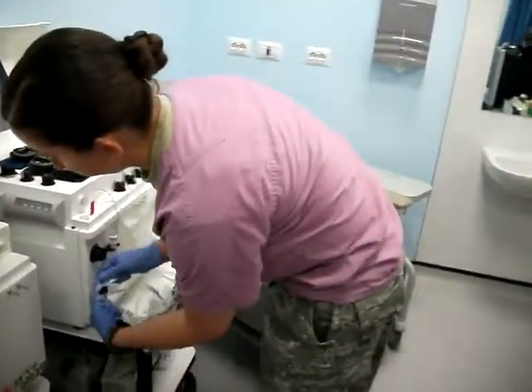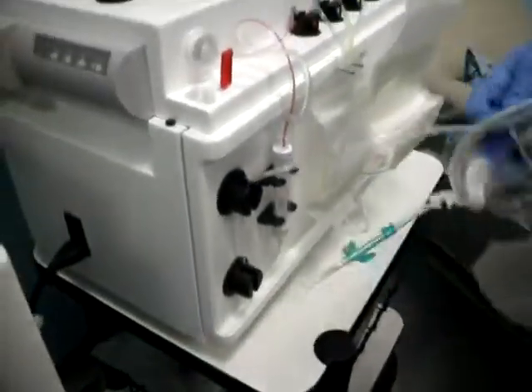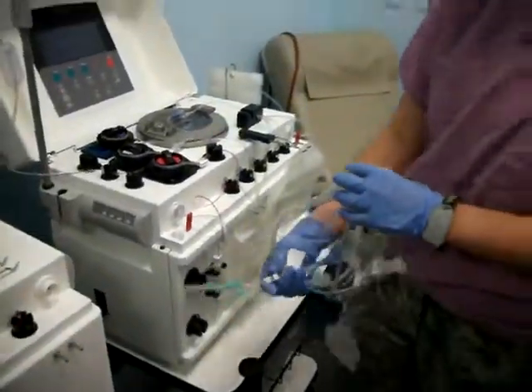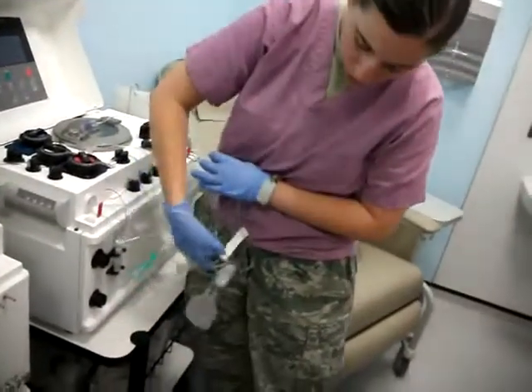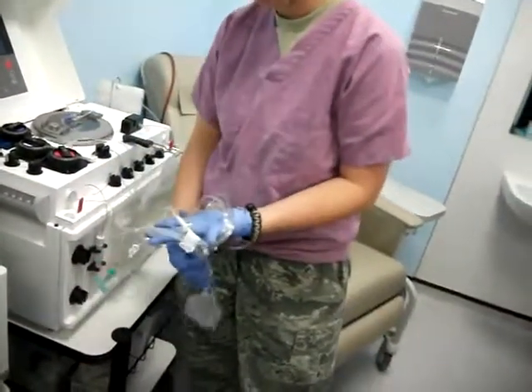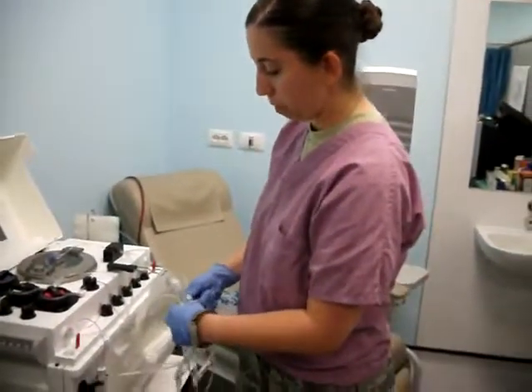This just gets flossed in between here at the air sensors. Then go ahead and clip the clamps shut — or you can do that at the end. It's really a matter of whatever works best for you.